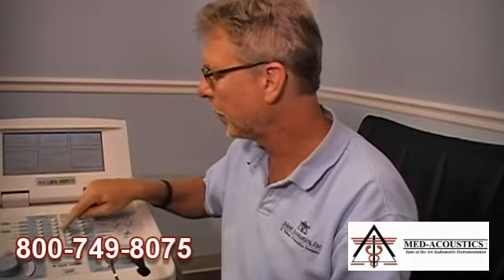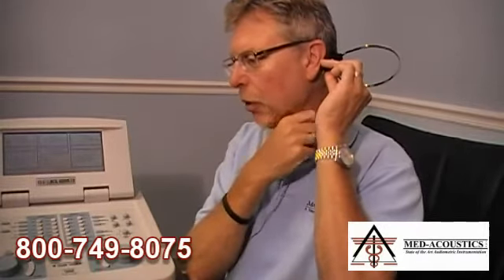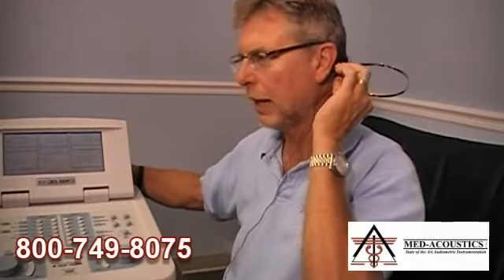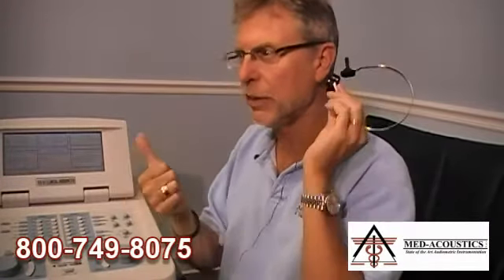Now I check the bone vibrator. I turn the level down to something like 25 or 30 dB — if you turn it on at 70 it will rattle. I select bone, put on a continuous signal, and then I stress the cord and the connection wherever it's plugged in, listening for a consistent signal. I can hold it on my mastoid bone or just put it near my ear. The key is being accustomed to listening at that level so I can recognize whether the signal is approximately correct and whether it's consistent.